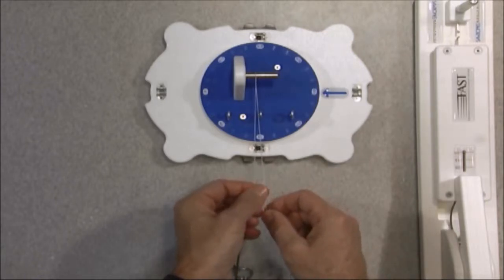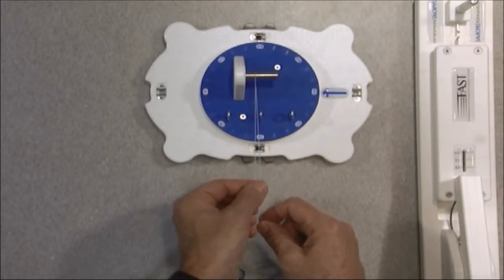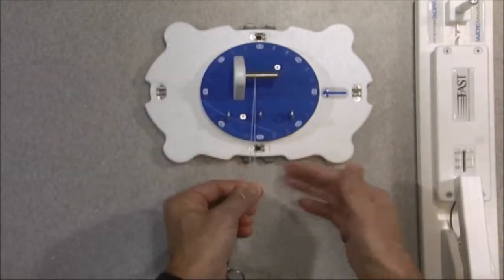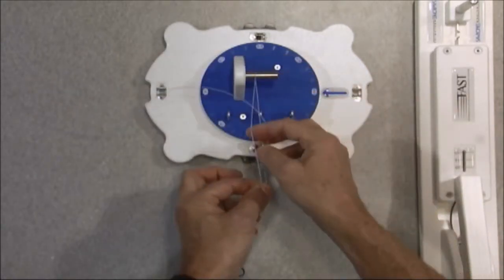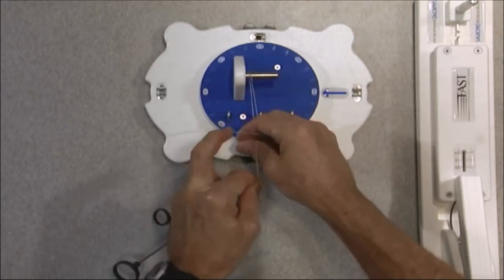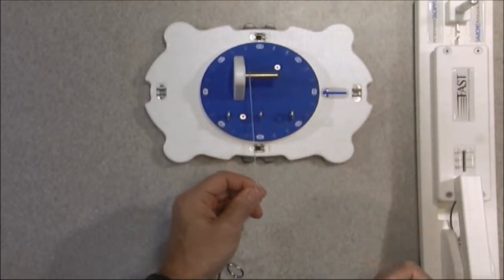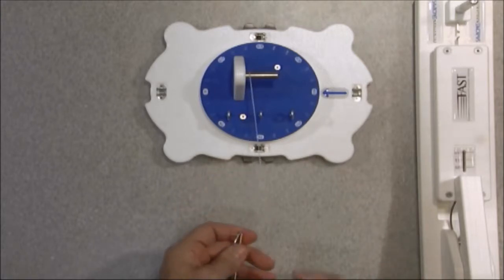I'd like to demonstrate the use of the knot tying station and knot tester for you. The first time I'm going to demonstrate just a Tennessee slider backed up with hitches. My goal here is to create a good knot so we can show how this resists load on the fast knot tying board.